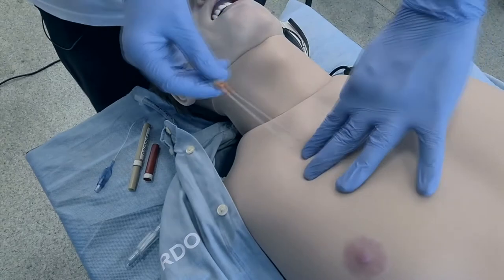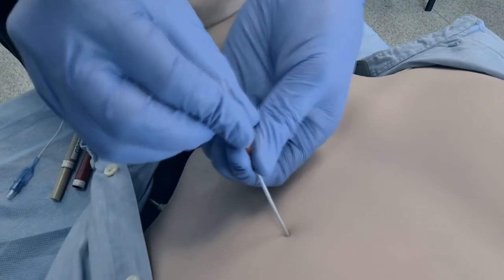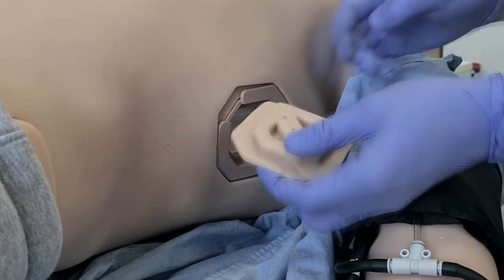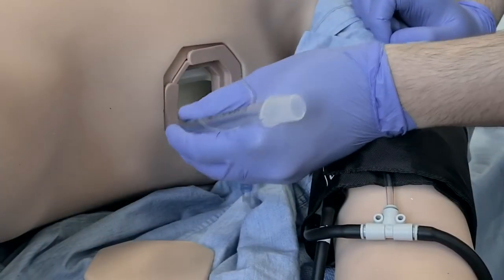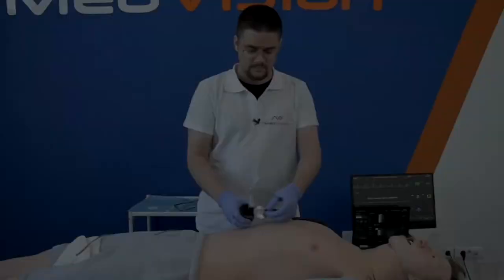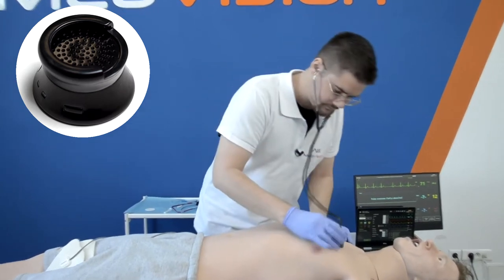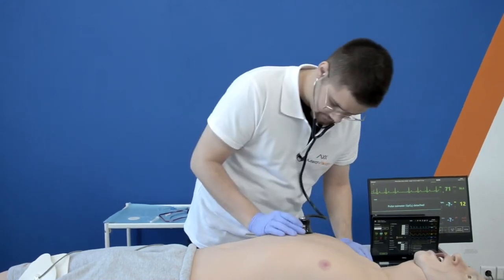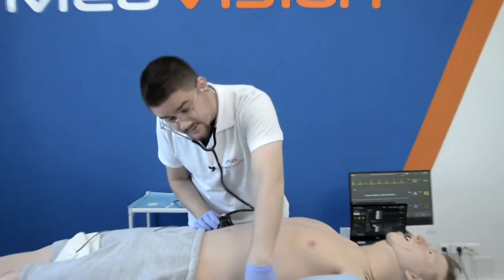Realistic anatomy and palpable ribs make it easy to find the right spot for puncture. On the side there is a removable hemothorax/hydrothorax pad with hard plastic ribs, and behind it there is a cavity for chest tube insertion. Auscultation is performed with our smart scope adapter, which has a soft flexible rubber part so you can use your own stethoscope. Leo has five cardiac points, five lung anterior points, four bowel points, and six lung posterior points.